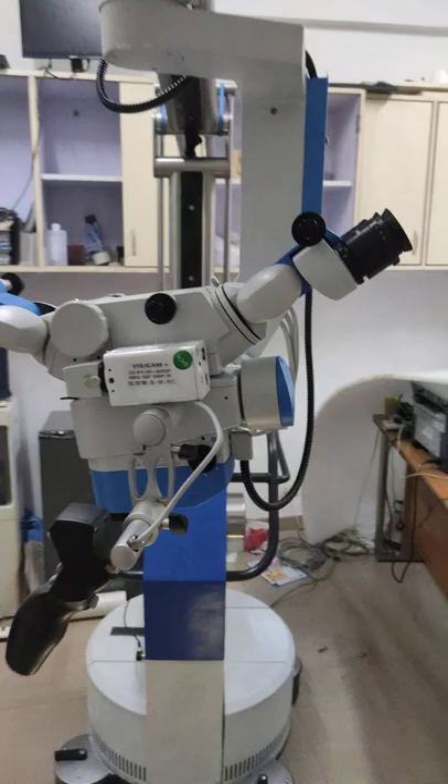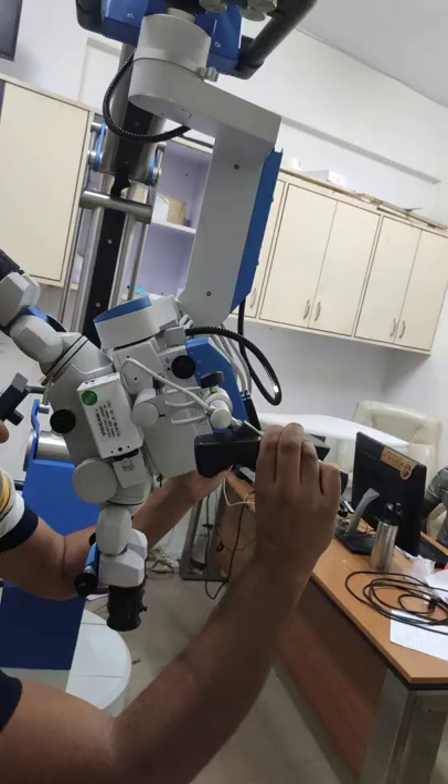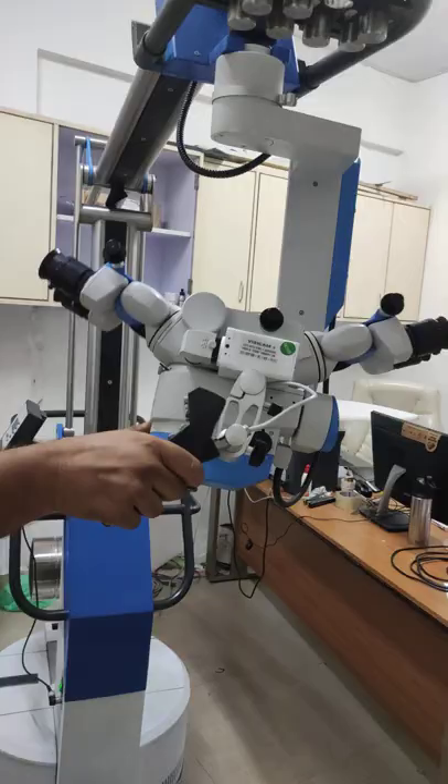You can see the movement clearly. You can rotate them to a maximum point — 360-degree movement, up-down and left-right, wherever you want, and how smooth they are.